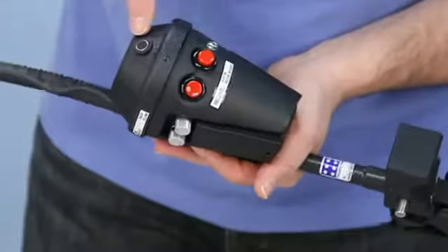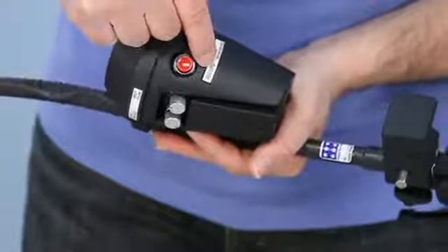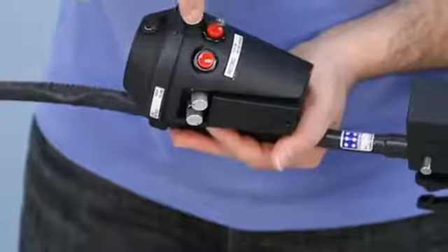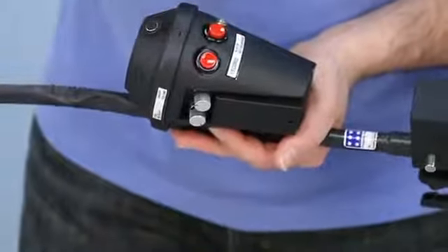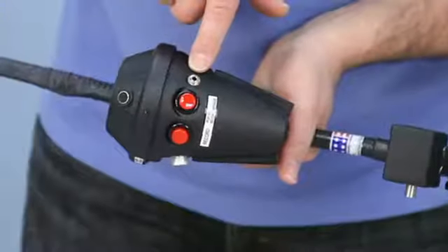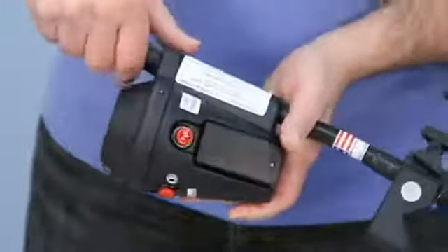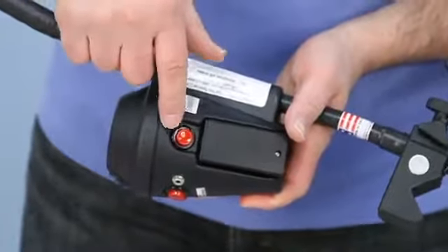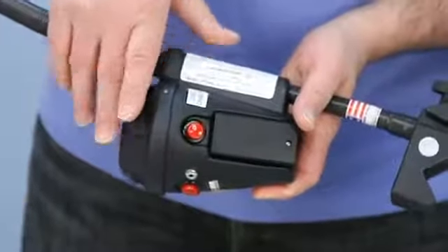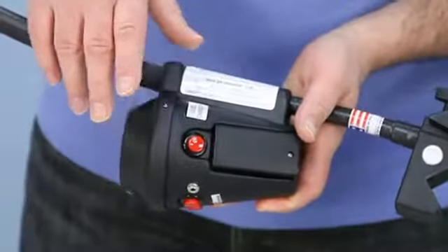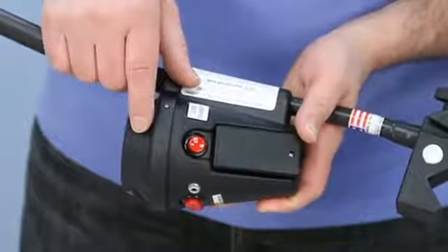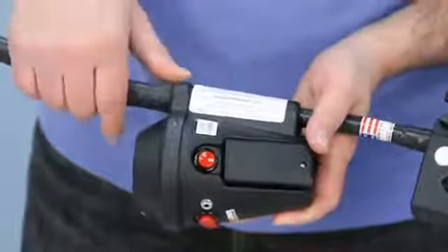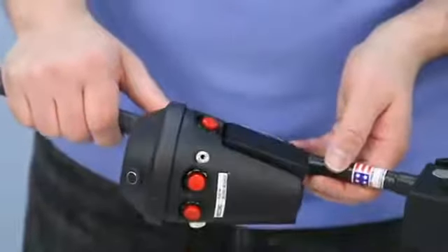On here towards the front, you have a microphone, your record button, and then your playback message button. These buttons are used for recording and changing your messages on the unit. There's your switch input jack again, as we mentioned a little earlier. And then on this side is also for your recording is your level changer. This will change the levels. This machine has six levels with a maximum of five seconds per message. And you can have up to 50 messages on this machine that can be re-recorded. So my next step is let me show you how to do that and how to use the device.